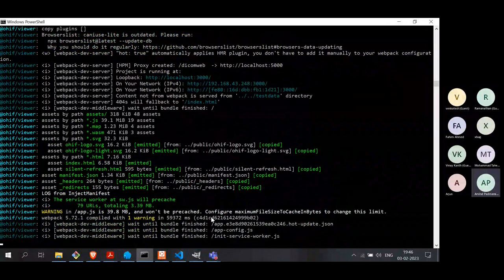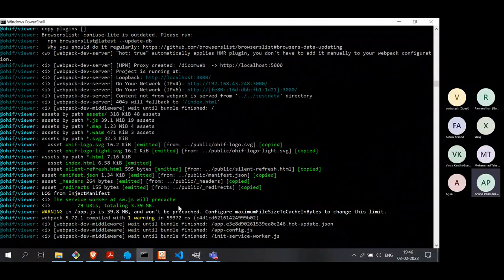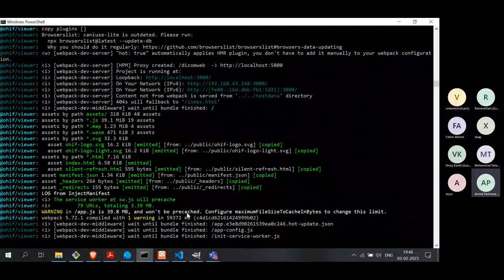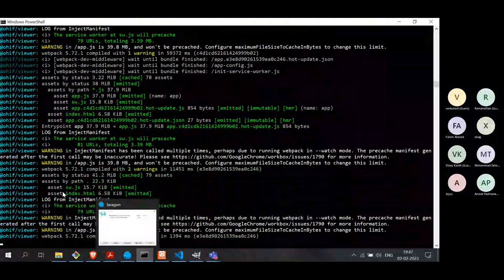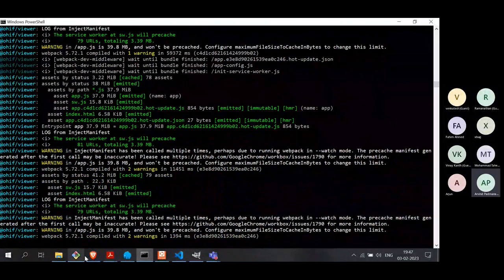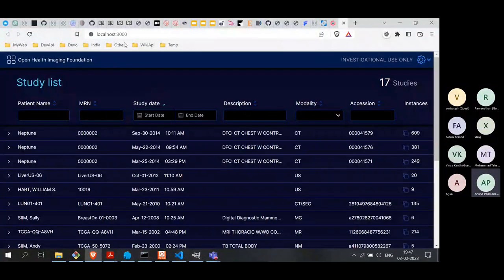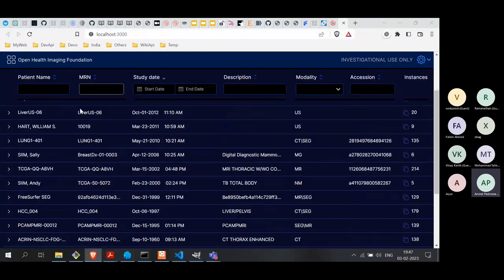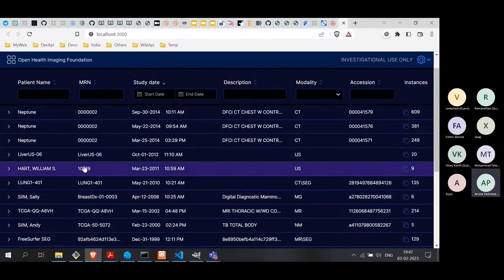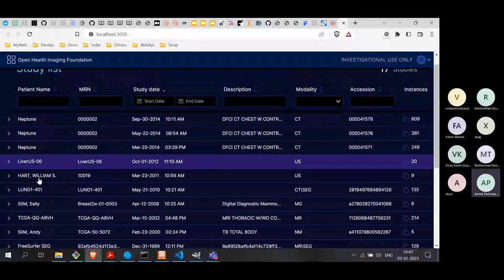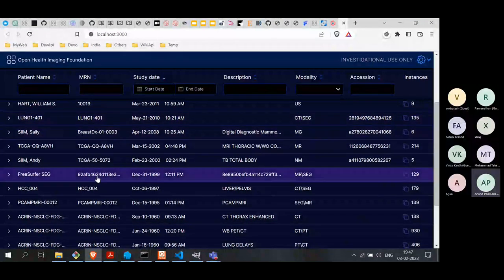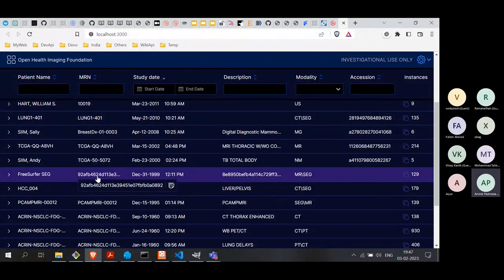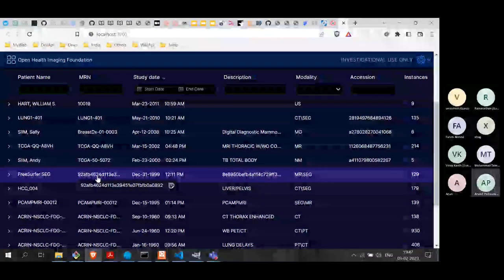The build uses Webpack — it has built the system, added things into the bundle, and started the app locally. It is now running on localhost port 3000. It's exactly the same thing we saw in the live demo online. The data itself is not on my system — the data is coming from a separate server called a DICOM server, which I will talk about shortly.